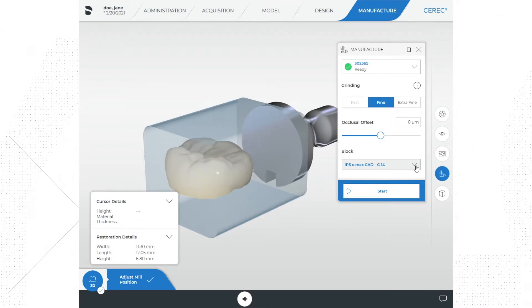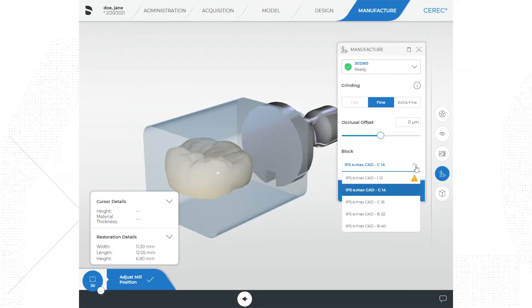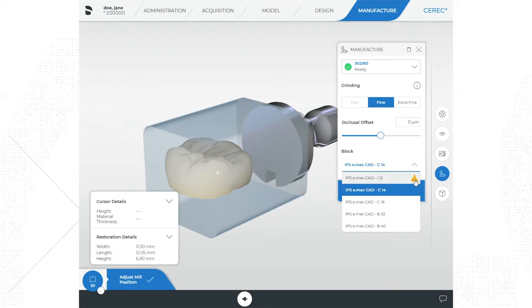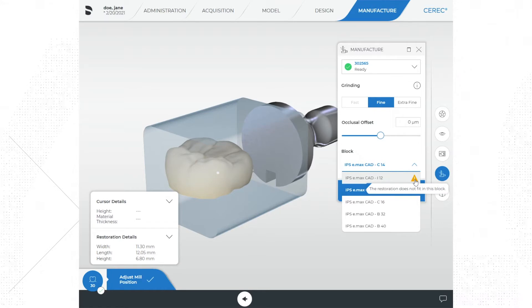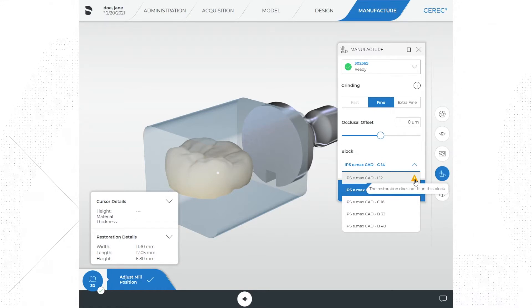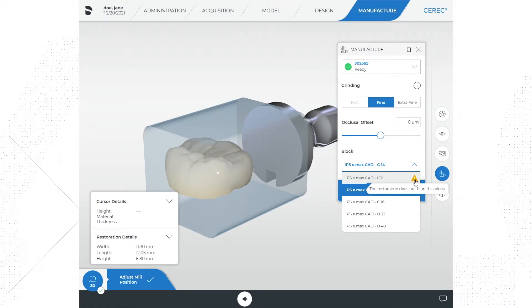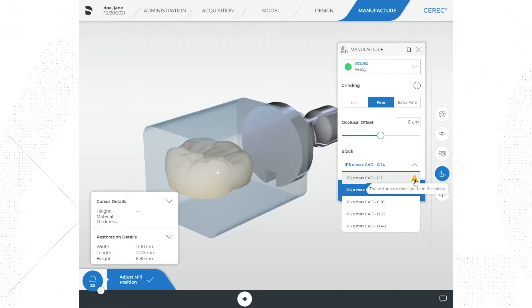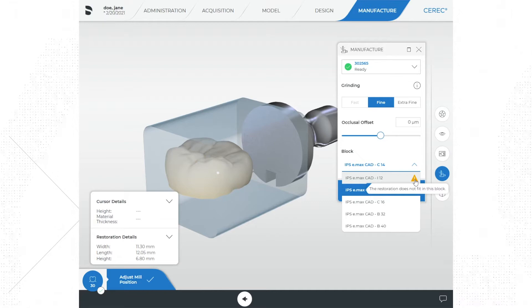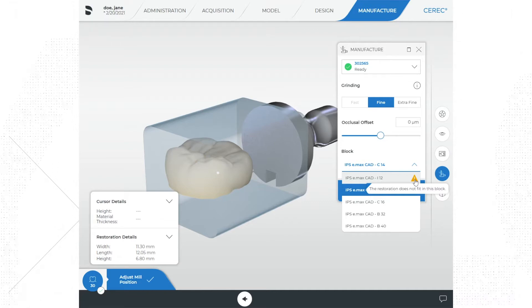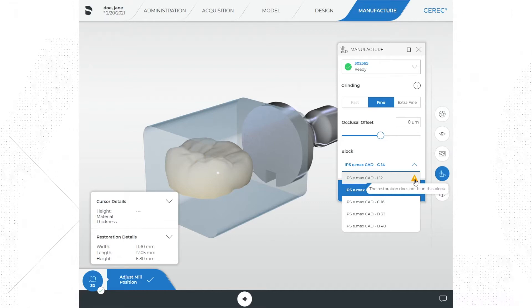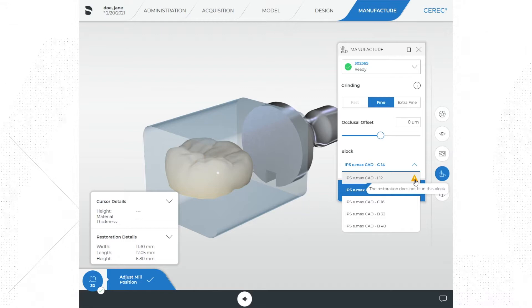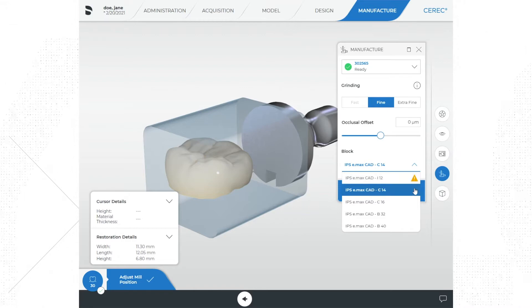If you click on the drop down menu you will see that an I12 has a warning symbol next to it because it is too small and will not work properly, but you can also see that we could select larger blocks like a C16 if we wanted. Why would we do that? Well if that's all we have, that is an option.